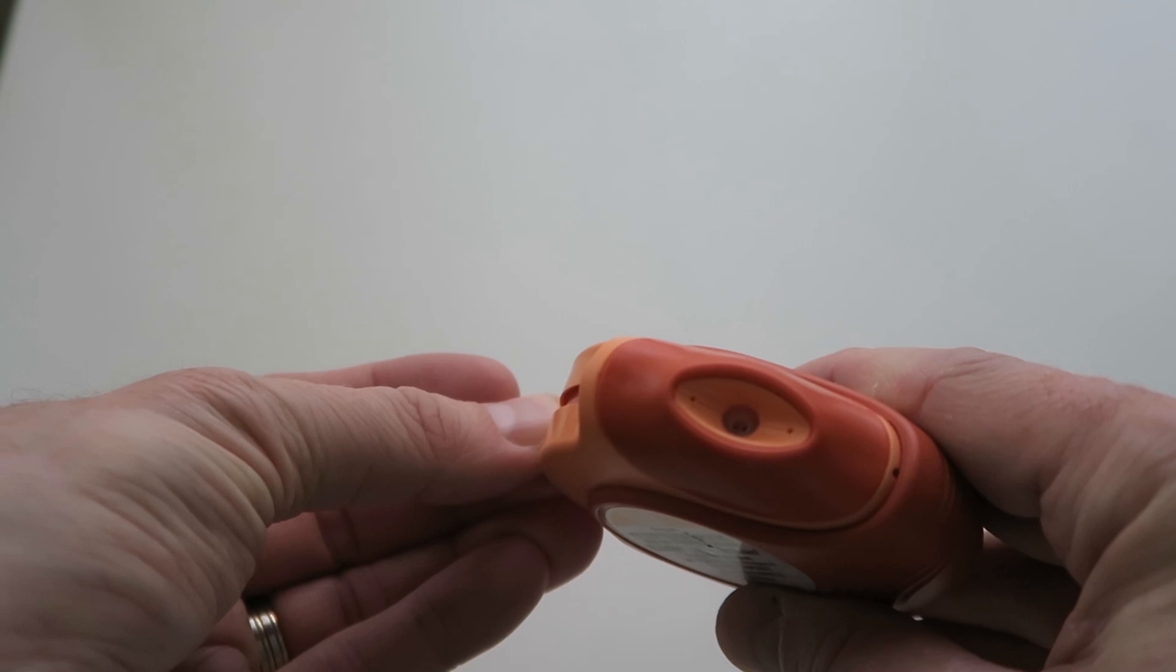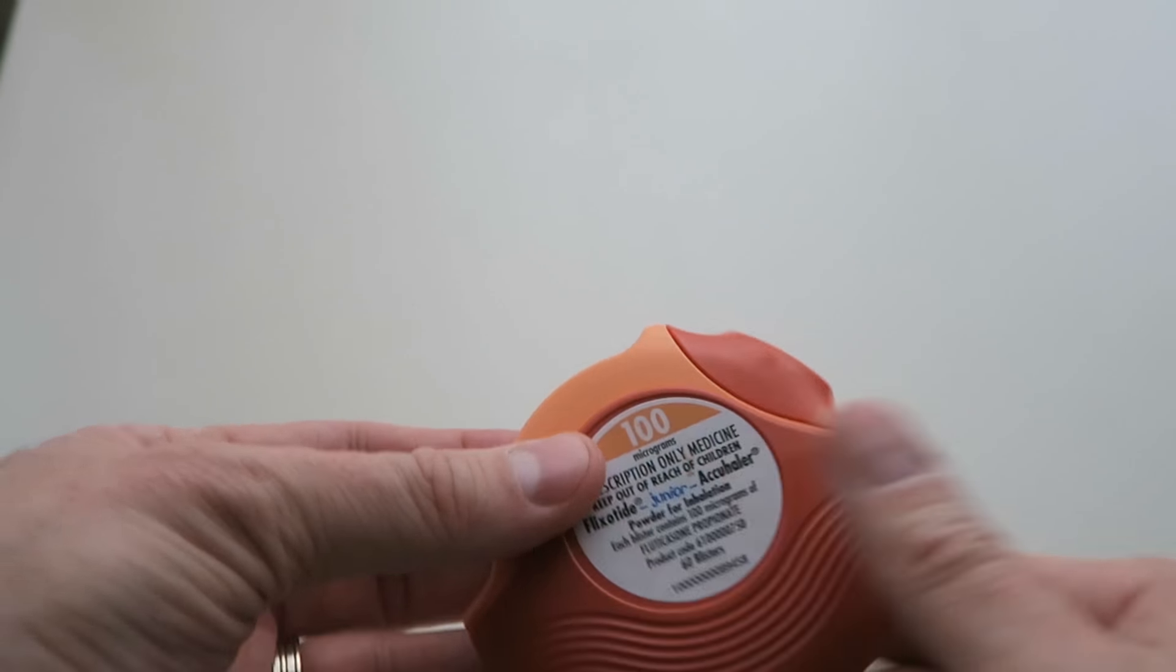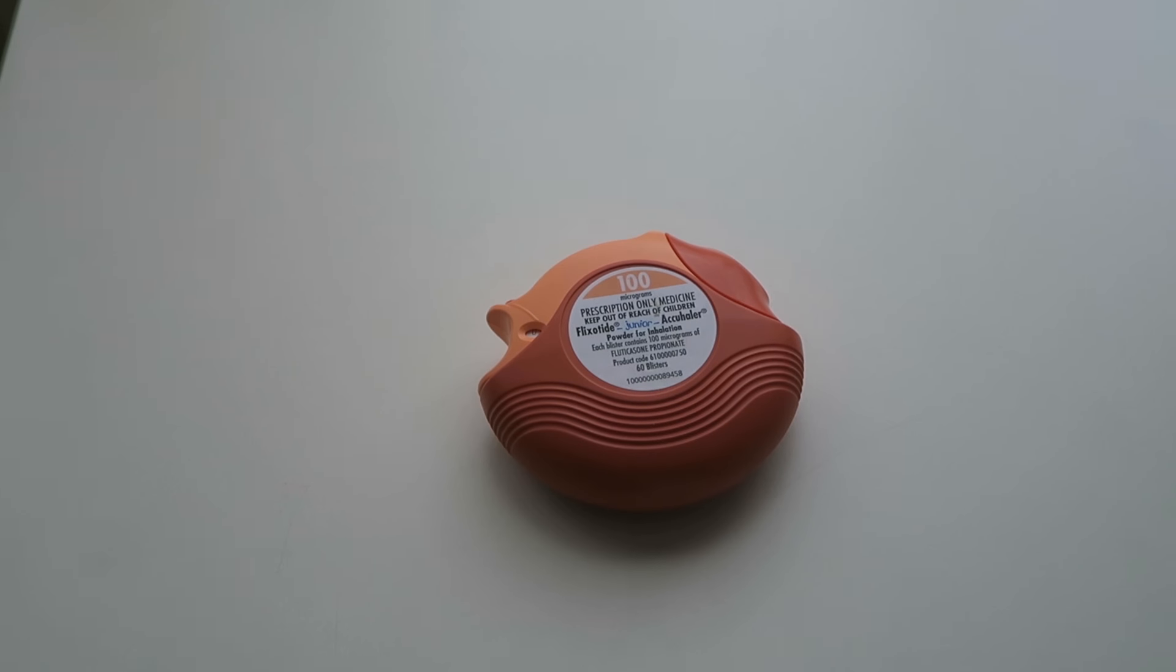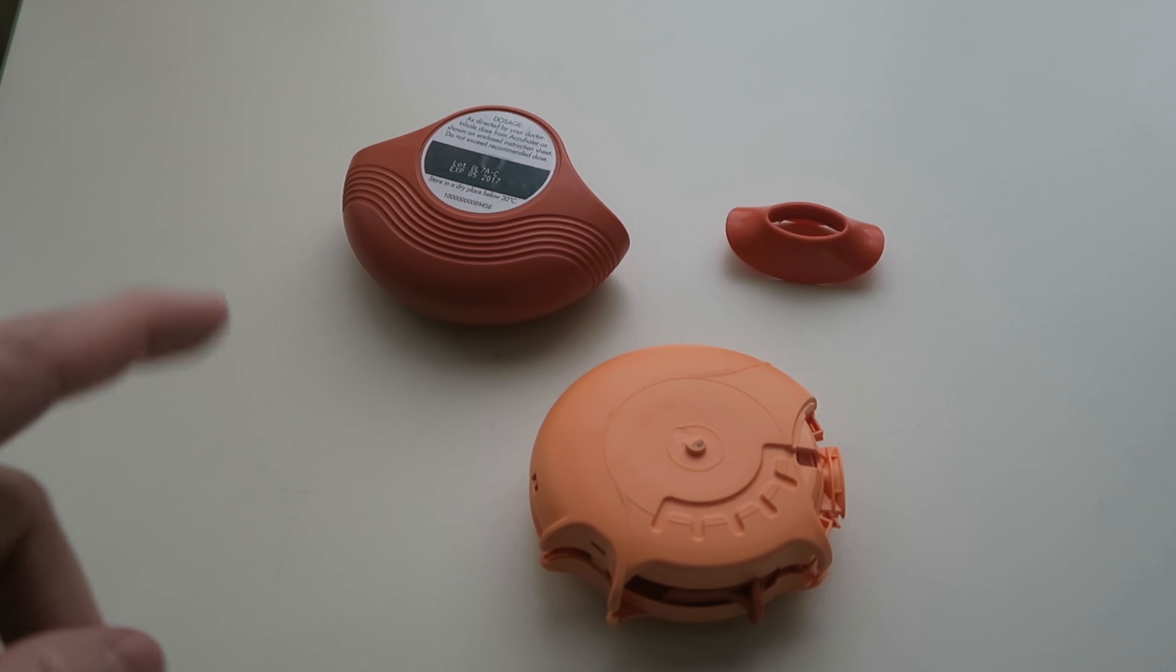So once again pushing that open on the inside. There we go. So let's crack it open, have a look inside. Okay, so we've got the AccuHaler opened up now.